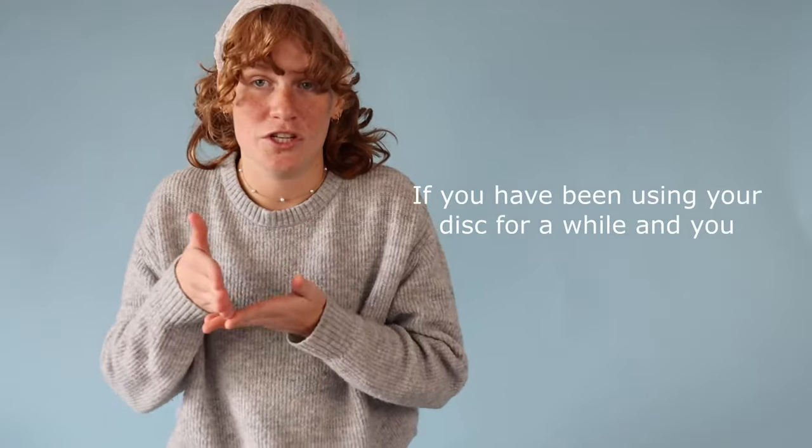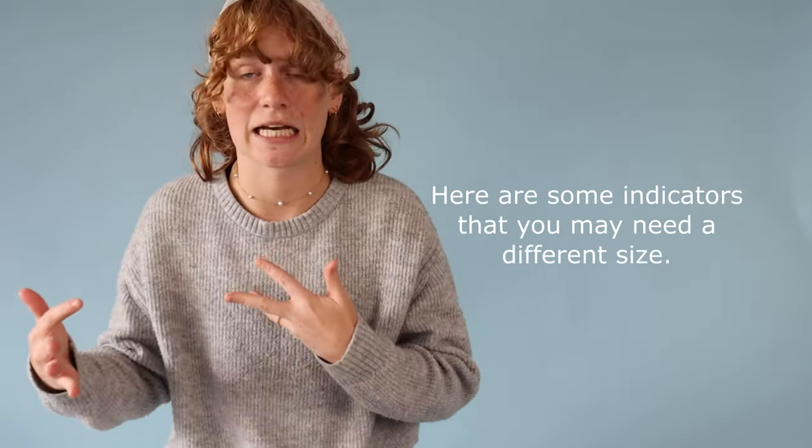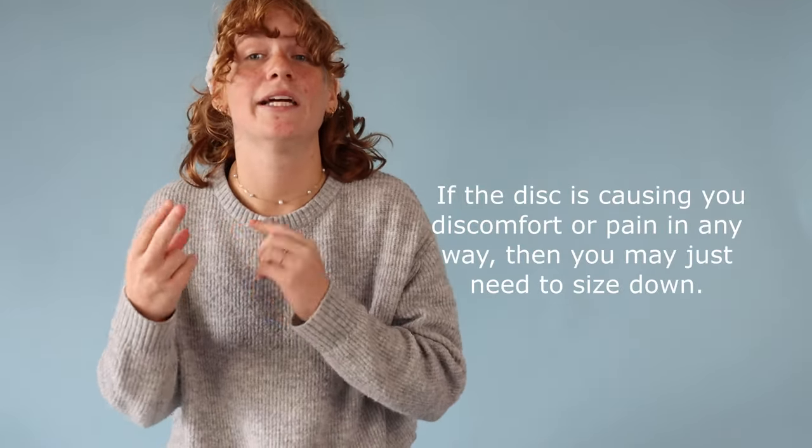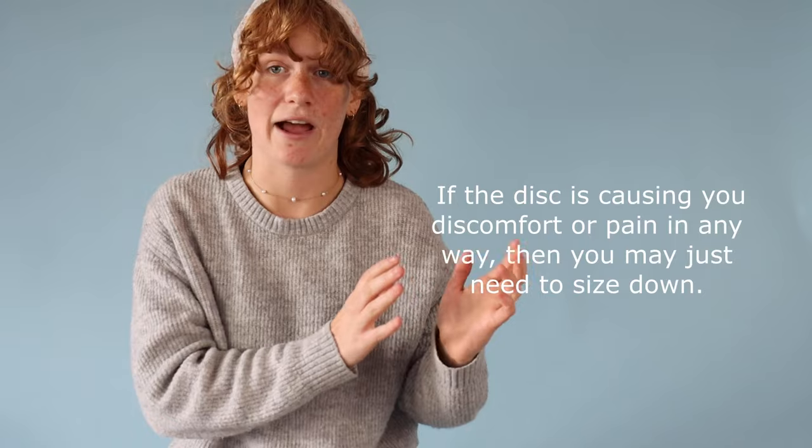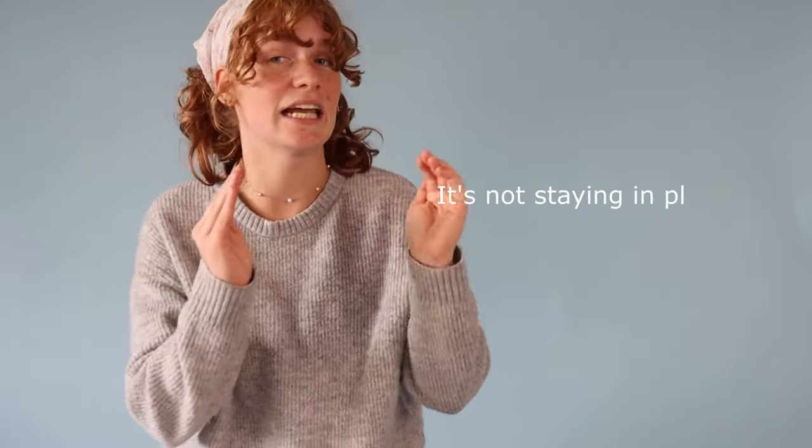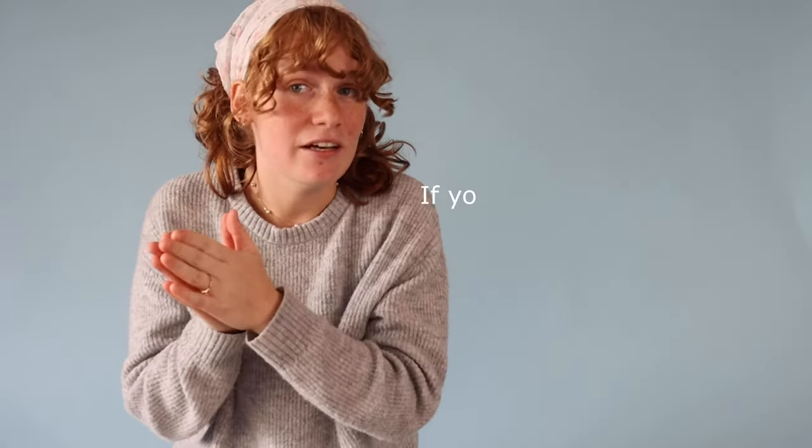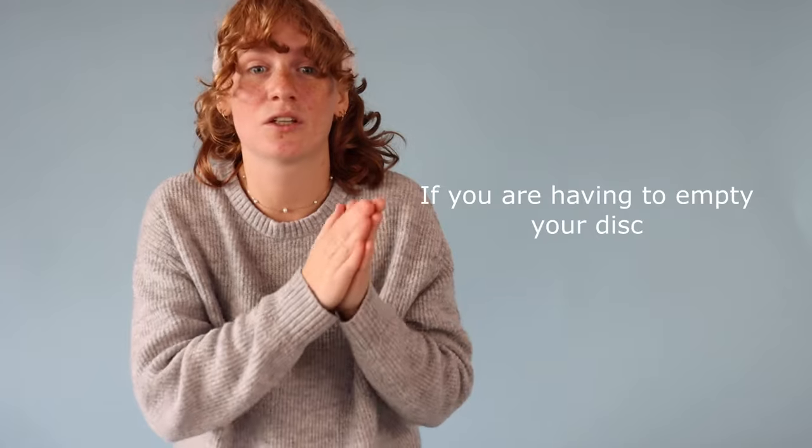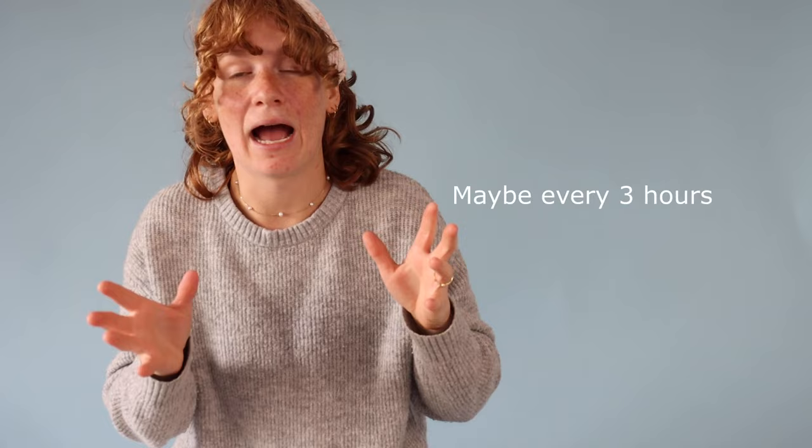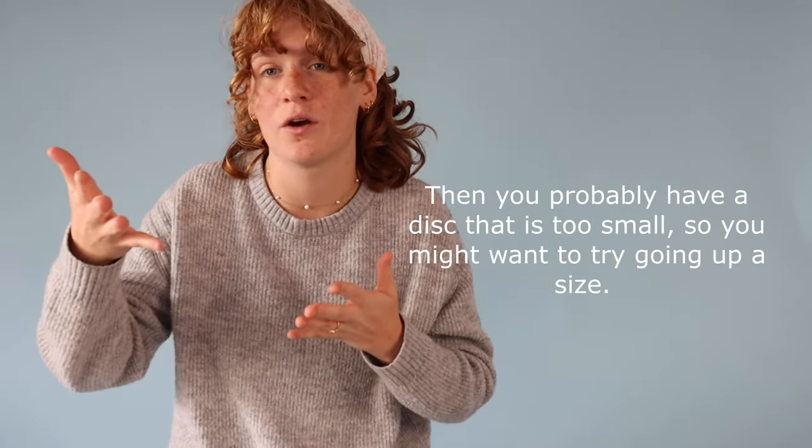If you have been using your disc for a while and you don't think it's the right size here's some indicators that you may need a different size. If the disc is causing you discomfort or pain in any way you may just need to size down. If you've been using your menstrual disc and it's still coming untucked, it's not staying in place, that might be a reason to change sizes. If you're having to empty your disc quite a bit more often than you thought you would, maybe like every three hours, then you probably have a disc that's too small so you might want to try going up the size.